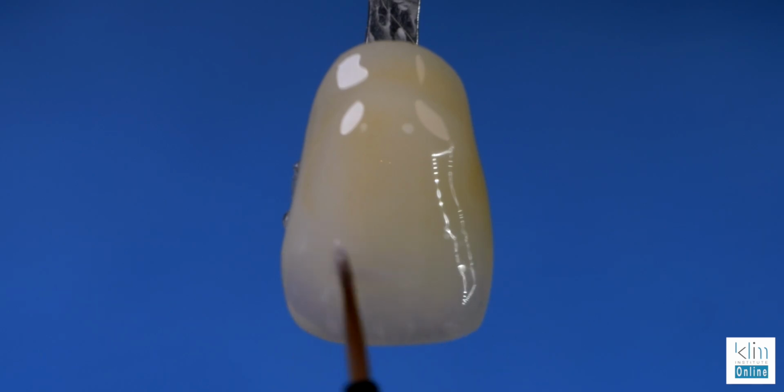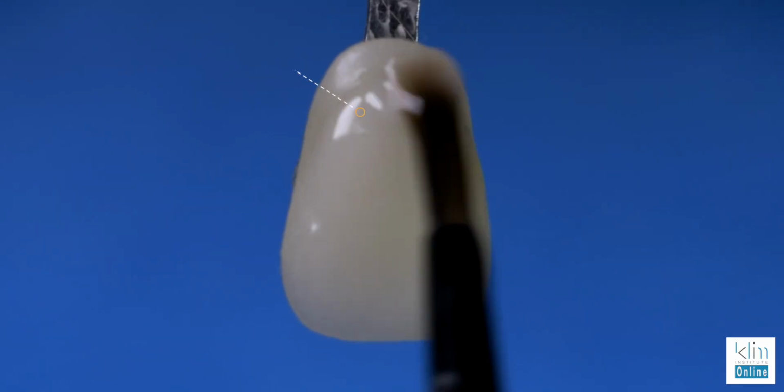Show them this video, practice, practice, practice, and pretty soon you'll feel very comfortable, because what you see in MiYO is what will come out of the furnace. With just a little caveat, I usually find that I have to add probably 10% more saturation of colors. Once they fire, then they'll be just about right. So let's go ahead and get started with this workflow and have some fun.